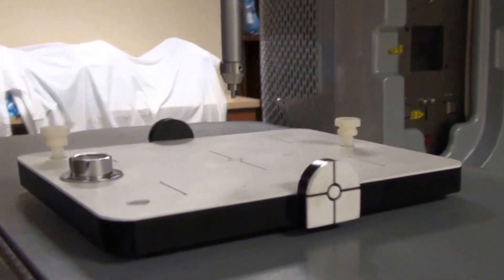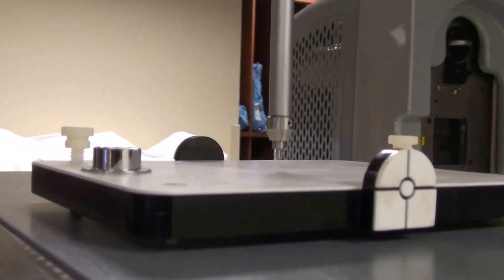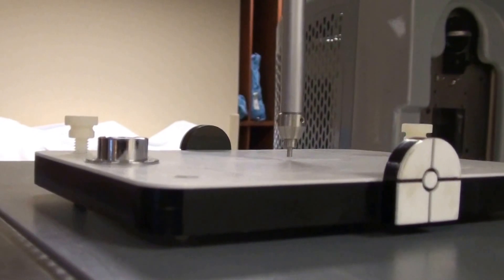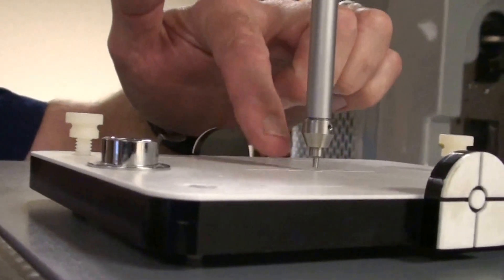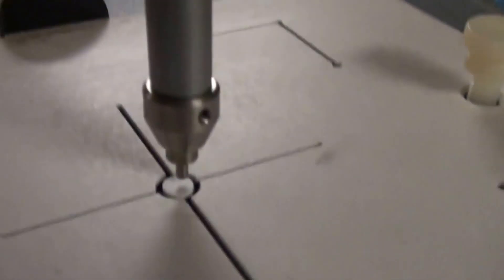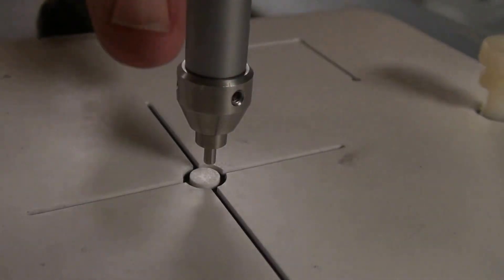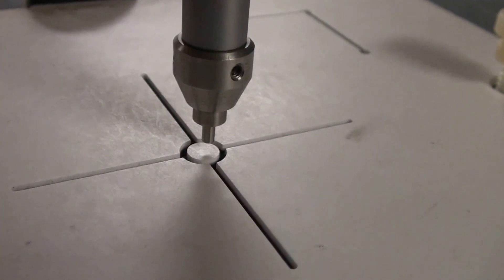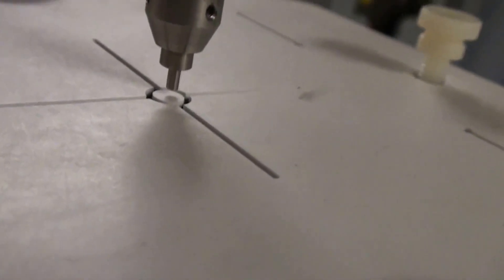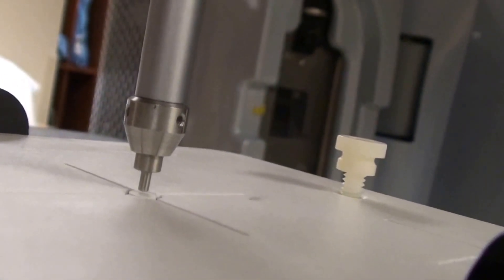Now that is very difficult to do without some practice. I usually get my face right down close to it. As you get closer — you may or may not be able to see on camera — but there is a reflection of this device on the surface of this. If you get your face right down even with the plane, you can see how the reflection comes up to meet the stick until they just touch.